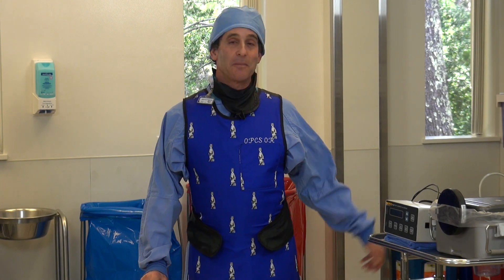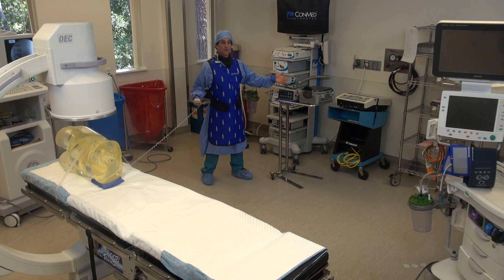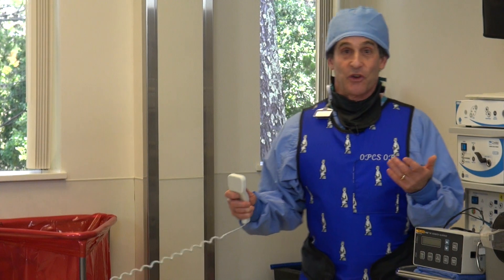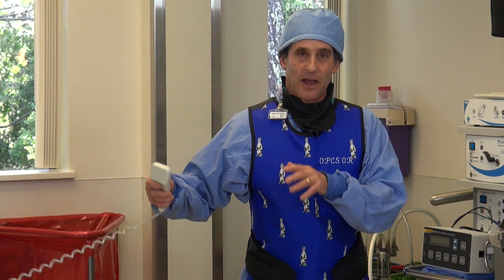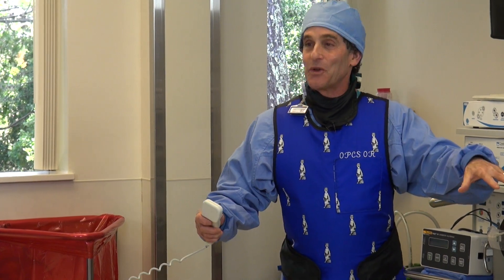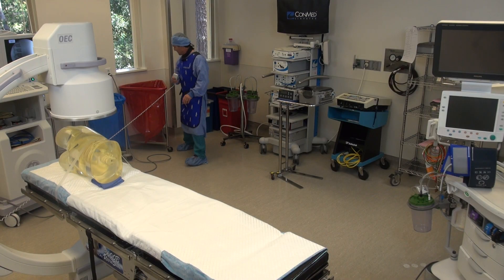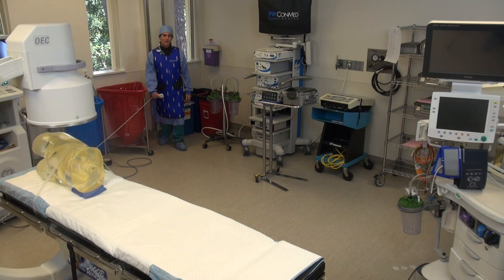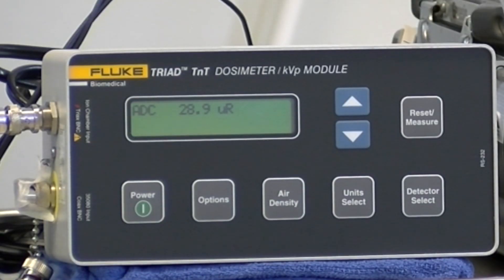Now we're going to set up at eight feet. Here we are at eight feet away. You're not going to be doing a case and be eight feet away unless you can really get yourself back there, which you'd love to do. A lot of times you have to be closer to the C-arm because you're actually moving it around. But this will show you how the dose has just decreased amazingly when you can get this far away. I'll reset the dosimeter, and we'll make that last exposure. It's 28.9 micro R.